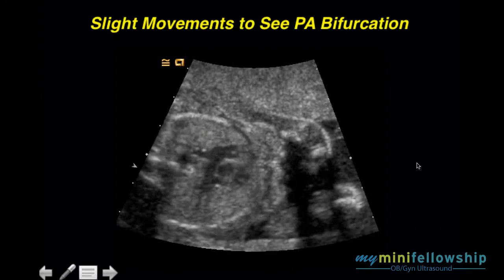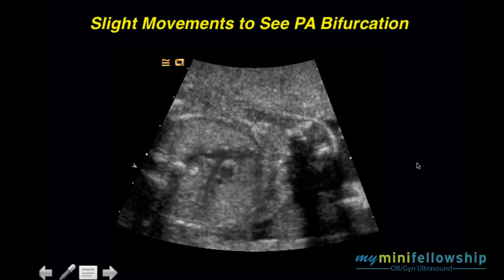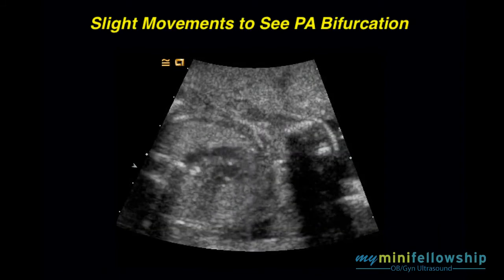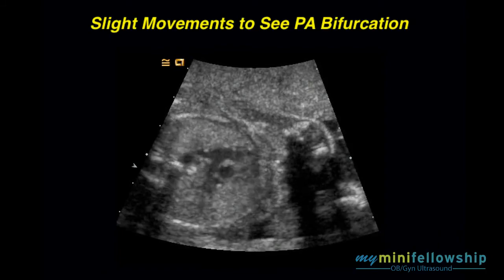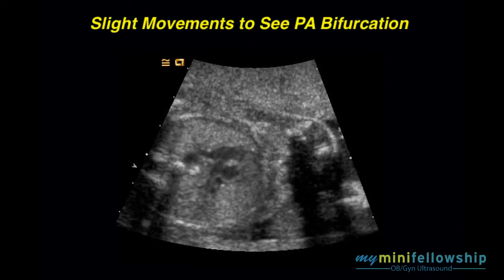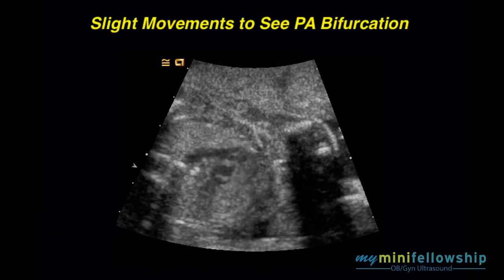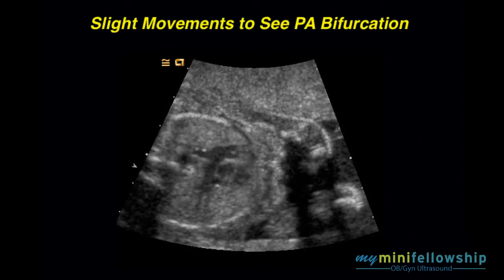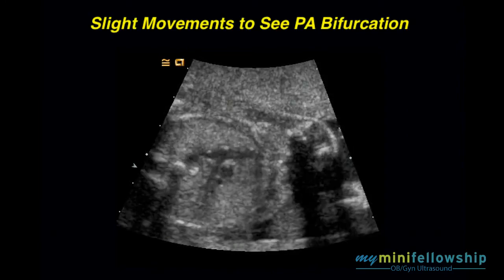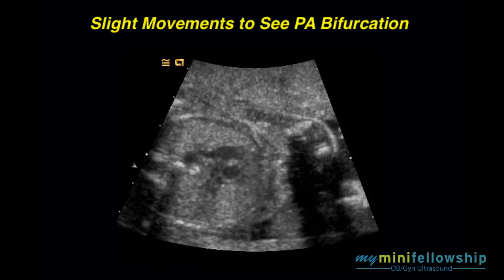I am an enormous fan of Cineclips. If you don't use Cineclips, it is my opinion that you are trying to do obstetrical sonography with one hand tied behind your back.